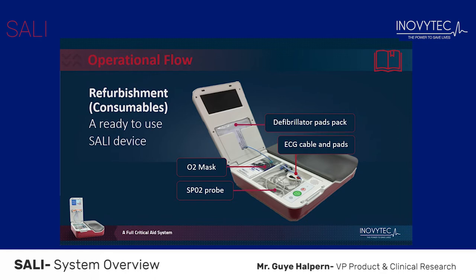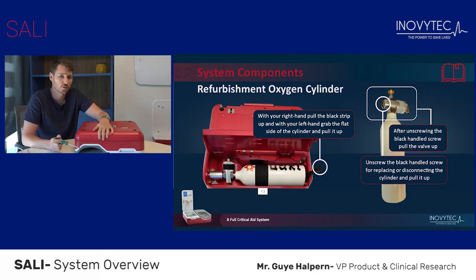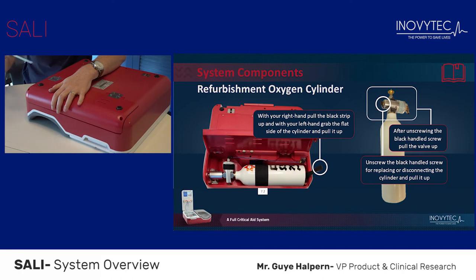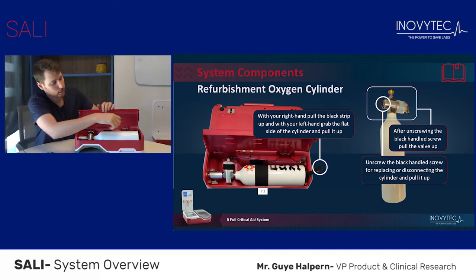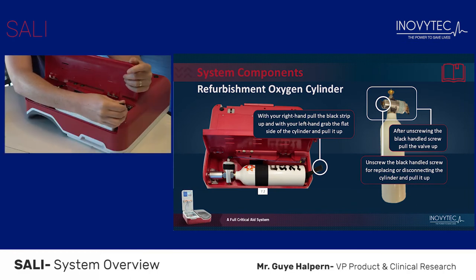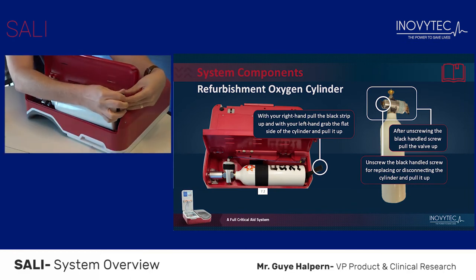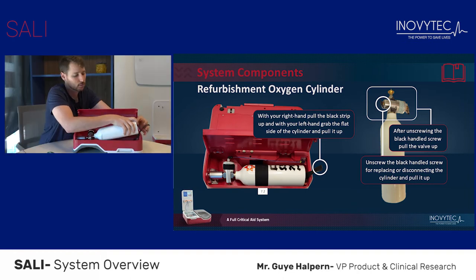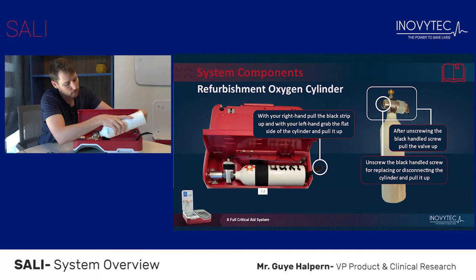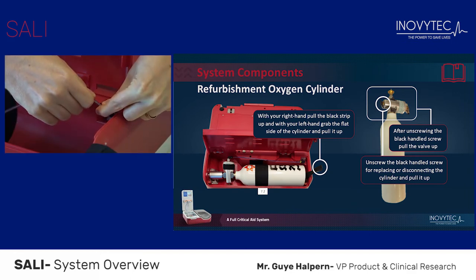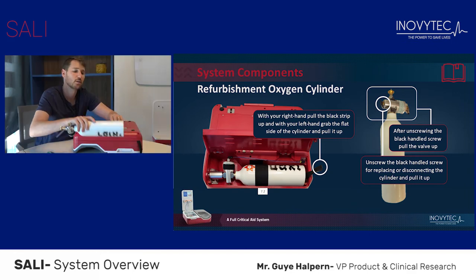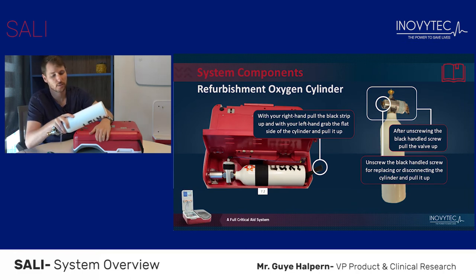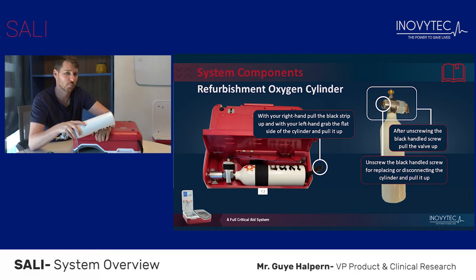To change the oxygen supply, simply unscrew the two screws located on the two sides of the oxygen panel. Open the panel door and, using the black lever, lift the oxygen cylinder and take it out carefully. Disconnect the short tube, then simply place the new cylinder inside the compartment.